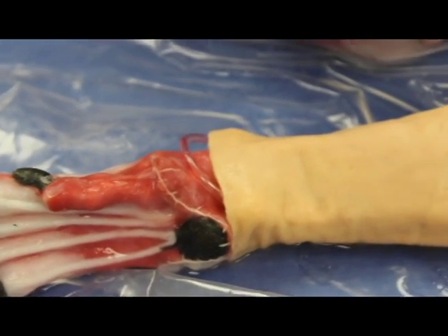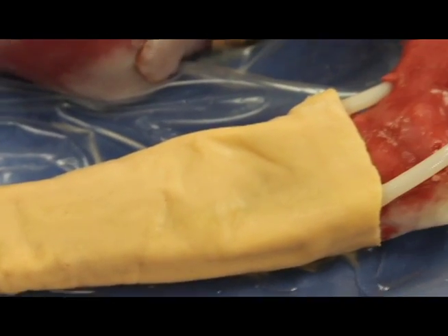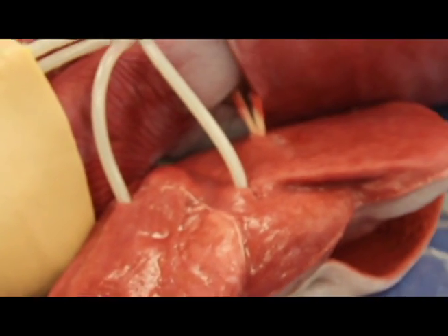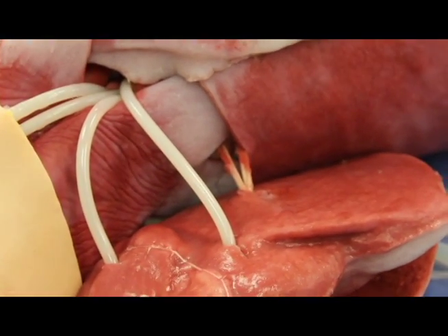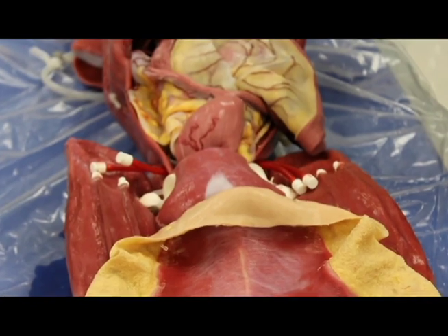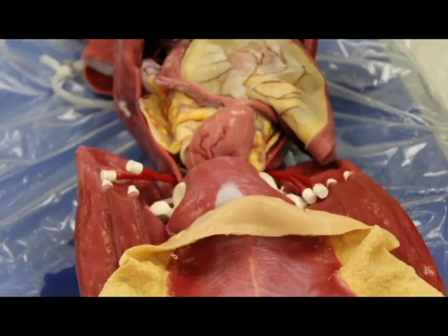Some of the things that we anticipate doing — before I even saw her, we were definitely planning on drawing blood. From the veins here in the arm and also the jugular vein in the neck, that's going to be a really big skill for our students. And then placing catheters and those kinds of things.